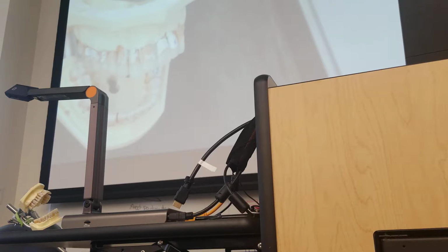Okay, so here's one edge and here's the other edge. Because your handle is here, this edge is closer to the handle and this edge is farthest away from the handle. This is the inner edge and this is the outer edge, because the outer edge is farthest away from the handle. The inner edge is closest to the handle. Inner, closer; outer, farther away. Show me the inner edge.